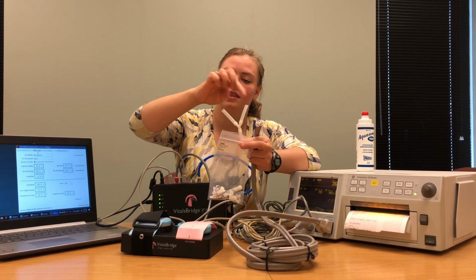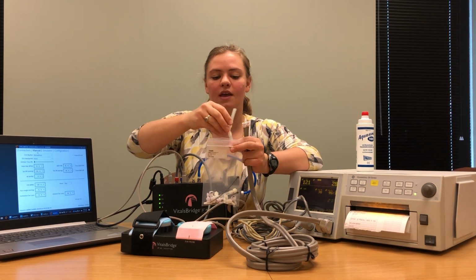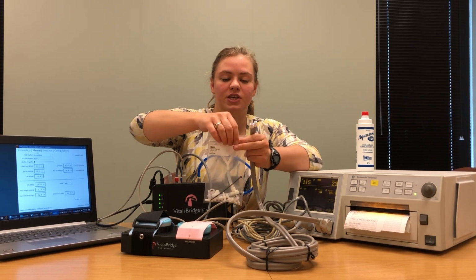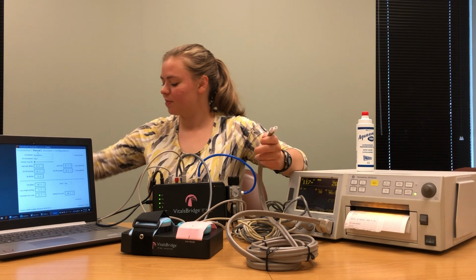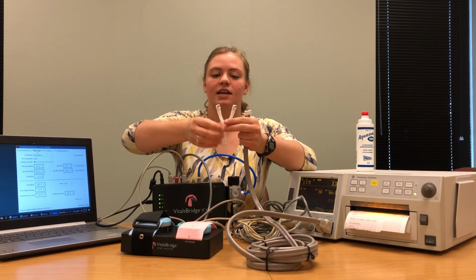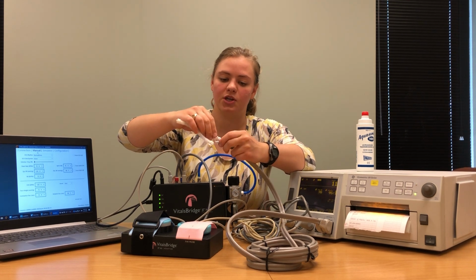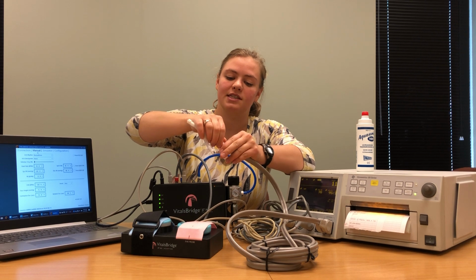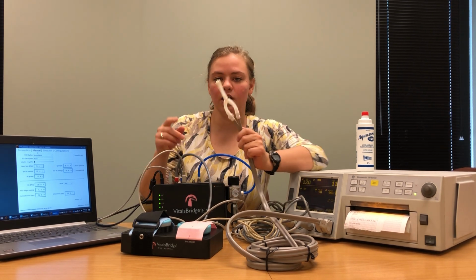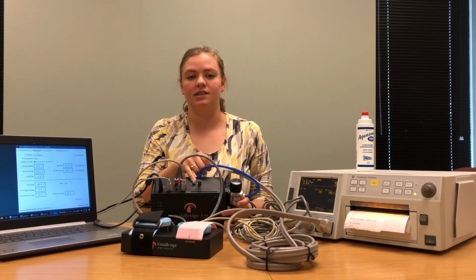plug them into these two ends of your non-invasive blood pressure fitting adapter. I've already prepared one in advance that's for my particular non-invasive blood pressure cable. My final adapter looked like this. I'm going to take the two ends that I just configured to fit with my non-invasive blood pressure cable, and I'm going to snap them into place. Once they're secure, I'm going to plug the pre-configured end of the adapter into my VitalsBridge where it says NBP.